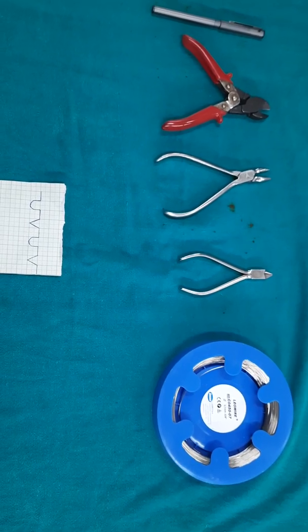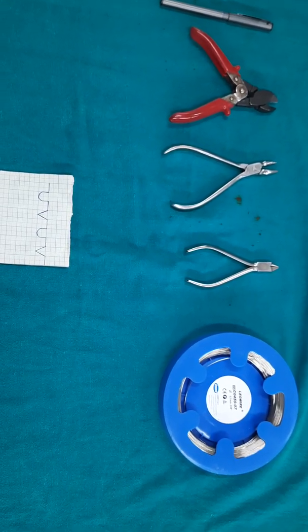Good morning everyone. Today we are going to fabricate U and V from an orthodontic wire.